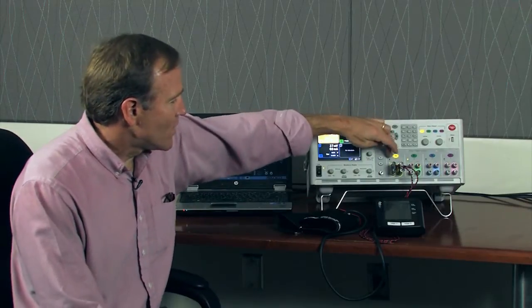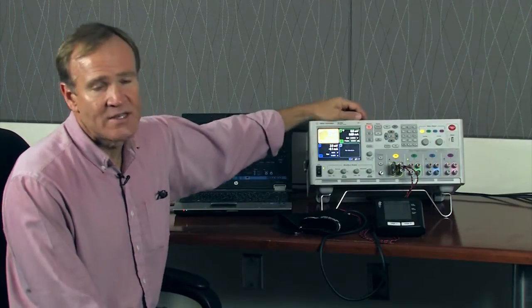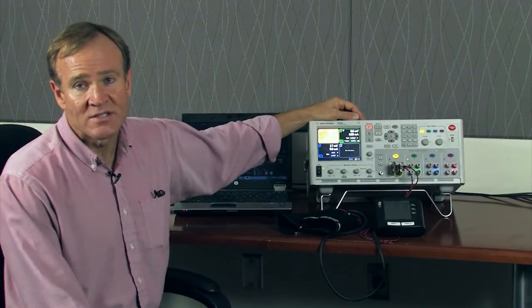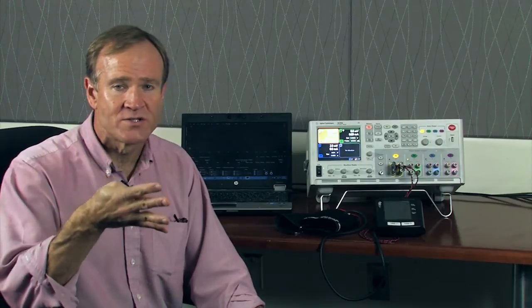Channel one is connected to an SMU or a source measurement unit. The unique thing about this source measurement unit is it has four current ranges. Three of those you can actually switch between seamlessly. And this is a patented technique that we have that gives you 28 bits of dynamic range.